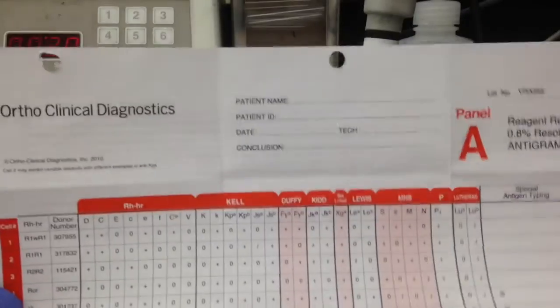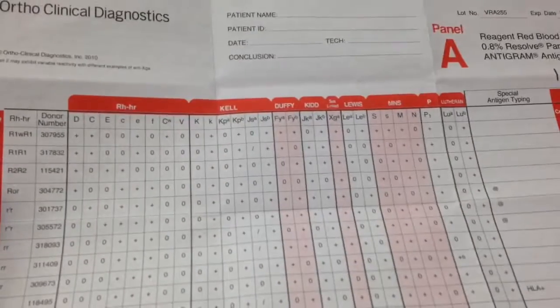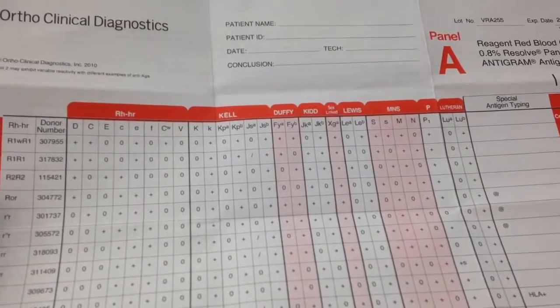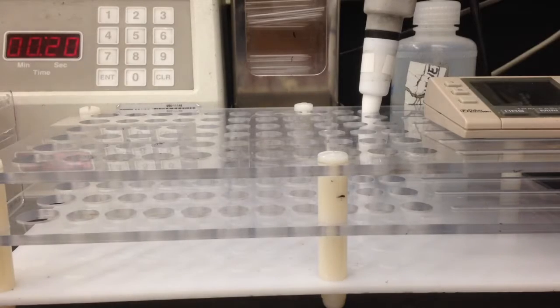It's pretty common for labor and delivery departments when you have Rh-negative mothers. This is what you would do as far as your panel, just to make sure there are no underlying antibodies beneath the D.